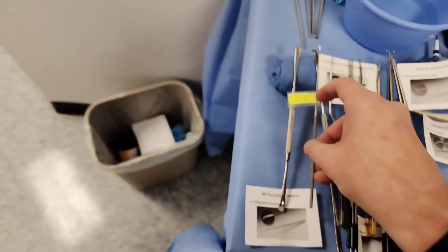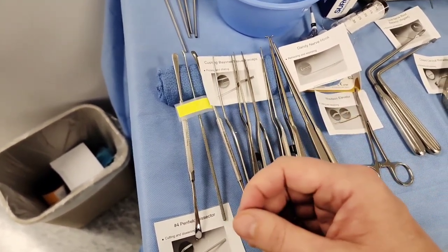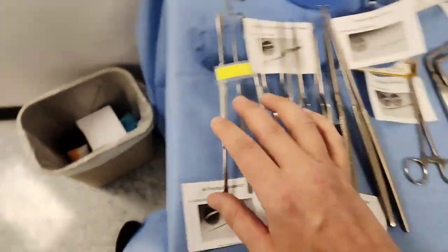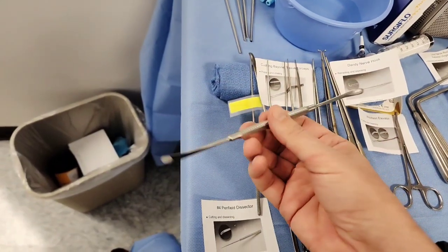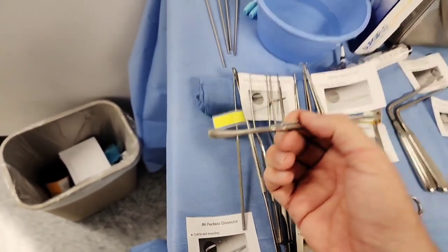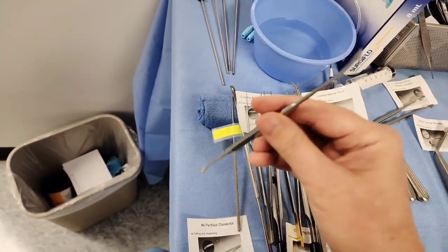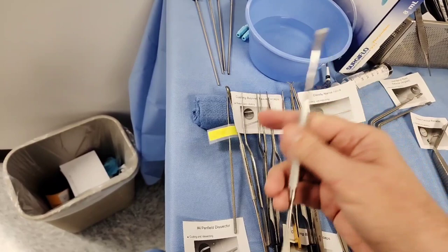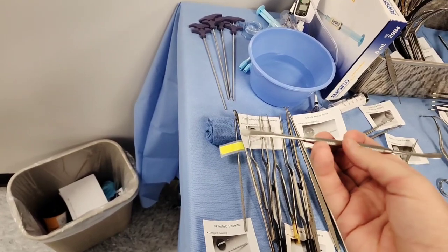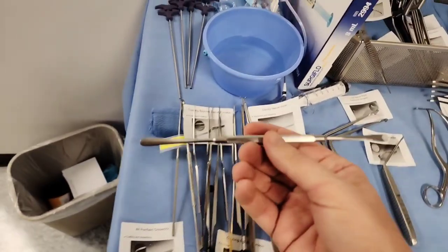On a CST exam, if they ask what equipment you'd use to help scrape osteophytes, Penfield can be an option, or curettes. The Freer elevator is dual purpose — on each side, one edge is a little bit sharp and one is a little bit duller. You can pick away at stuff, and anyone that's in neuro will notice there's a little bit of what they call bone wax on it. You roll it up into balls.